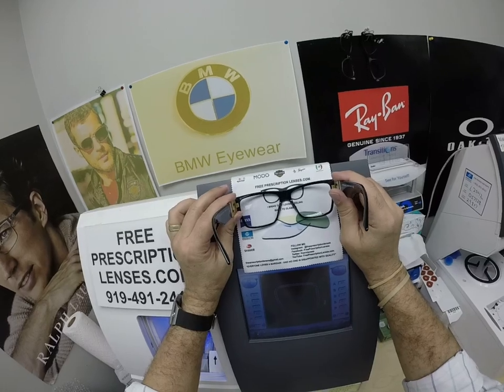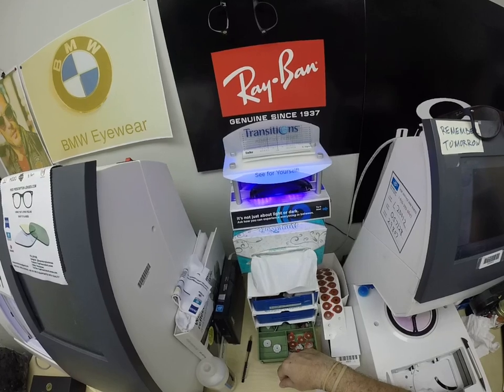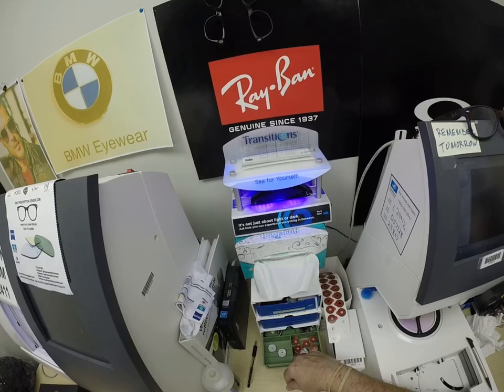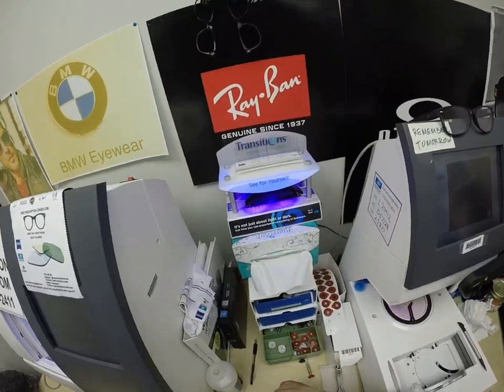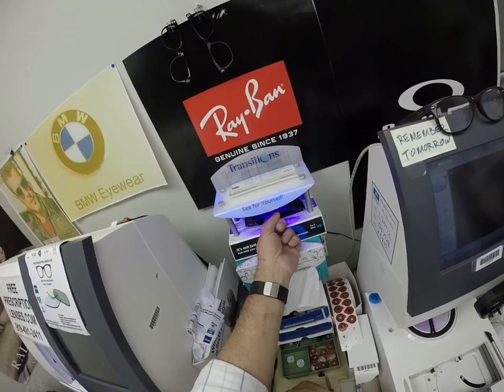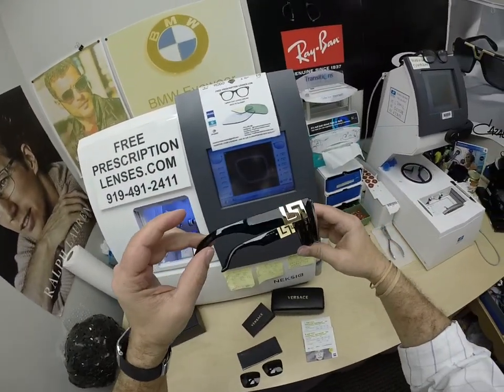This is how clear they get when they're indoors. I'm going to expose them to a strong burst of ultraviolet light. As you can see, it takes about 30 to 45 seconds for the lenses to darken — a little bit longer when you come back inside, 45 seconds to a minute, minute fifteen. All photochromic lenses get dark on day one and continue to darken every day for the first couple of weeks of exposure to the sun. Look at that beautiful gold to match the gold on the side.